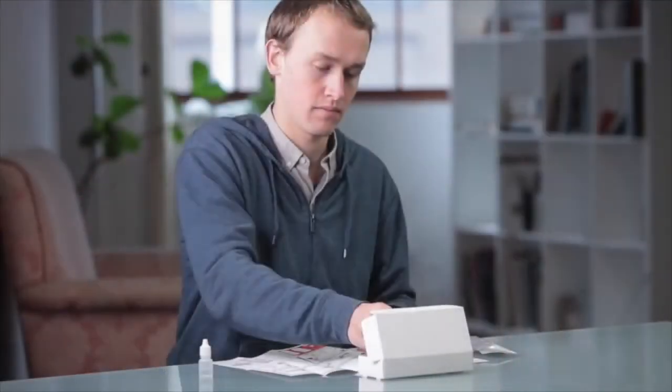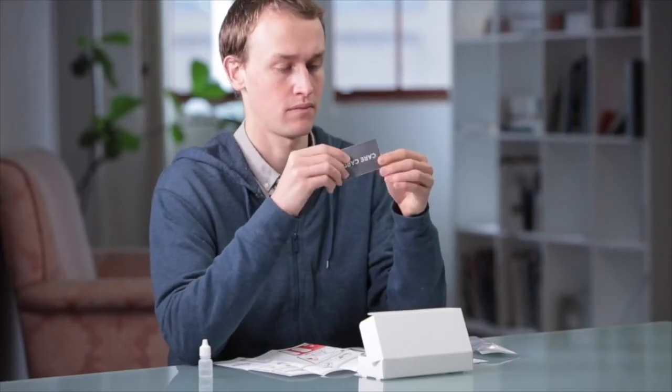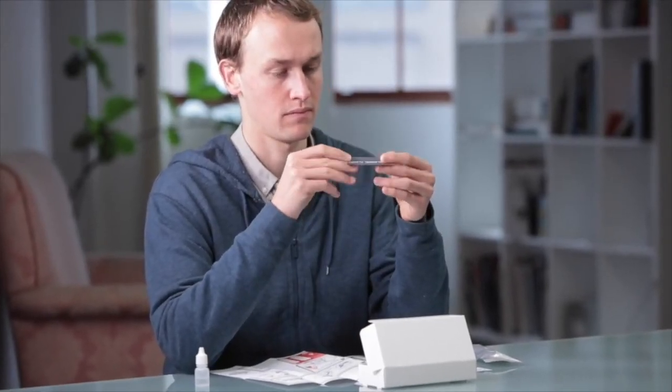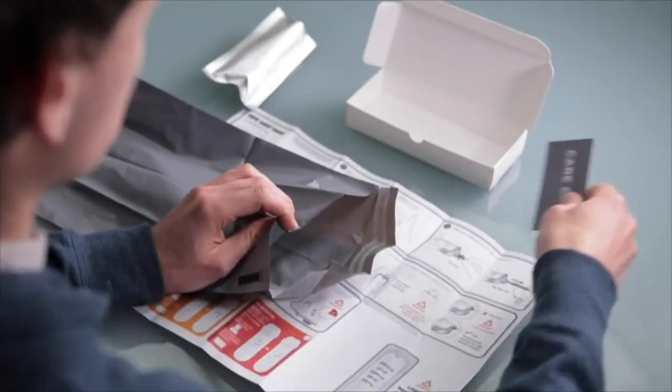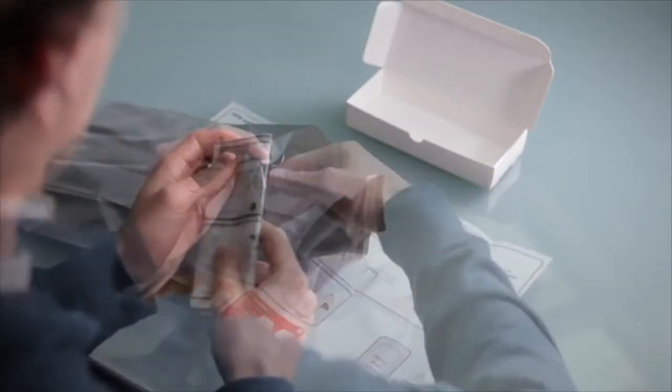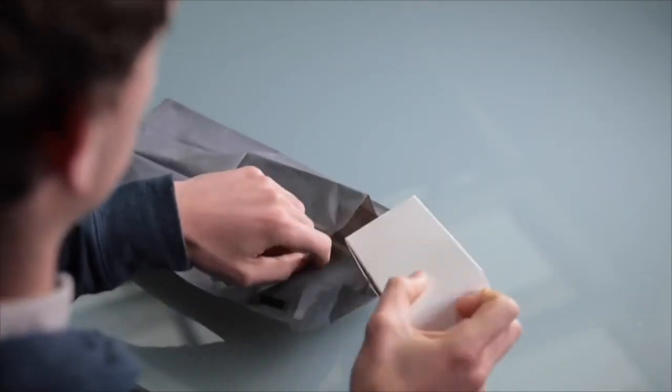The box also contains a care card that provides contact details if you want to ask questions about HIV, get follow-up testing, counseling or treatment. Now that the test is finished, you can dispose of it by putting all the test materials in the plastic bag provided and placing it in a rubbish bin.